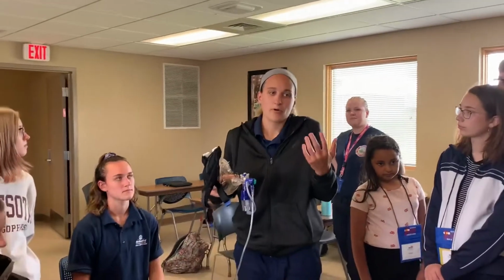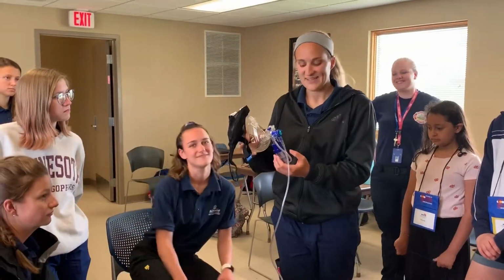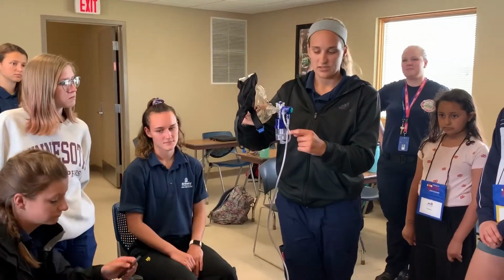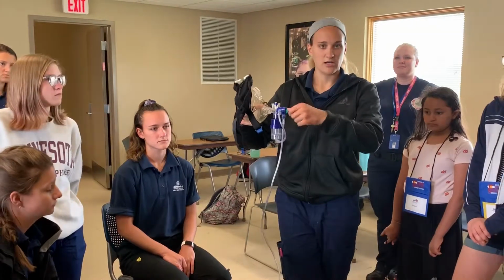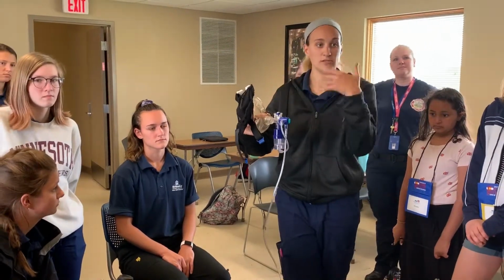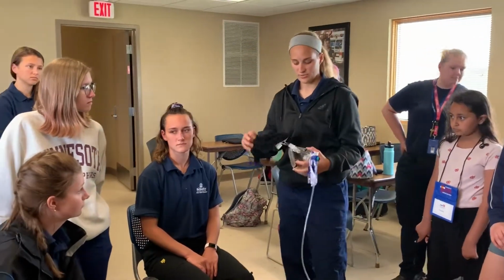If you choose to give them something, like if you have asthma, you probably have an inhaler. That inhaler is probably albuterol. That's what I use, at least. That will be put directly into the nebulizer, and as oxygen is going through, you can turn it on and off to allow the treatment to go in as well as them receiving oxygen. So if we were to turn it on, we would turn it on.